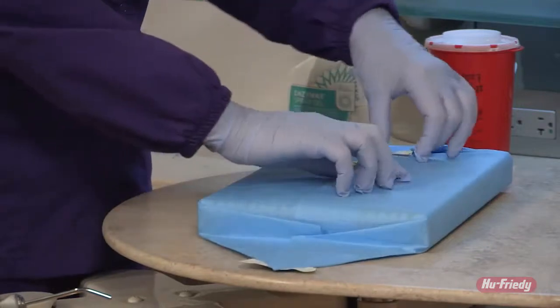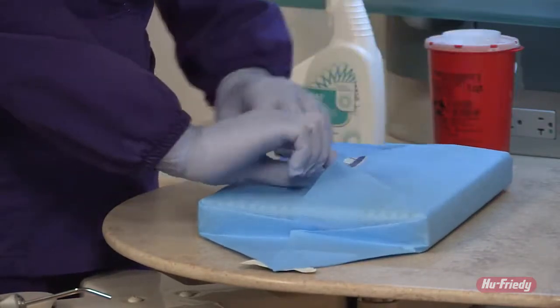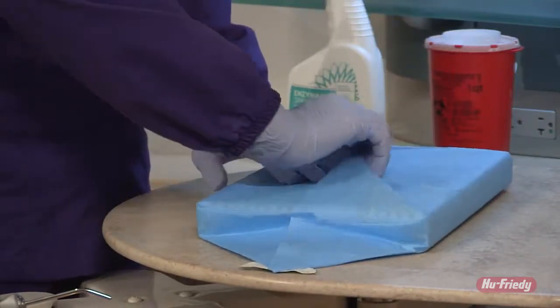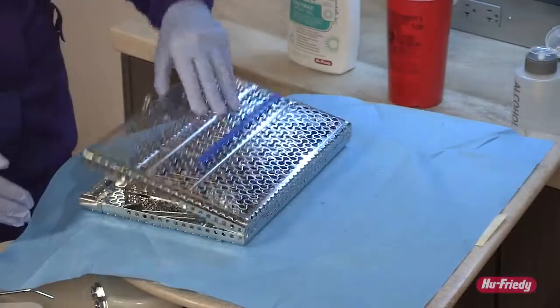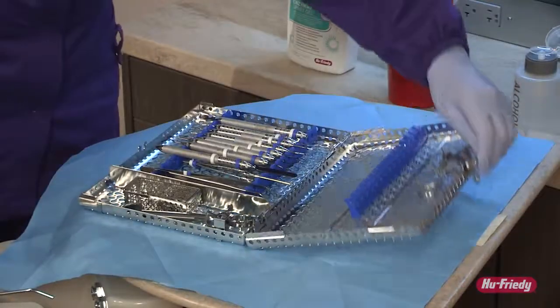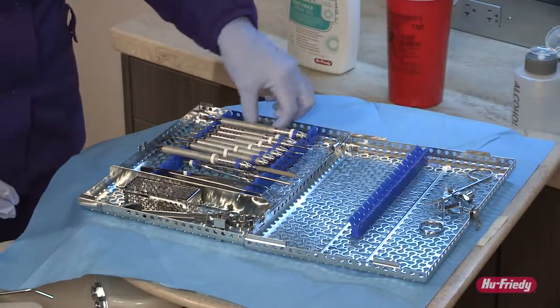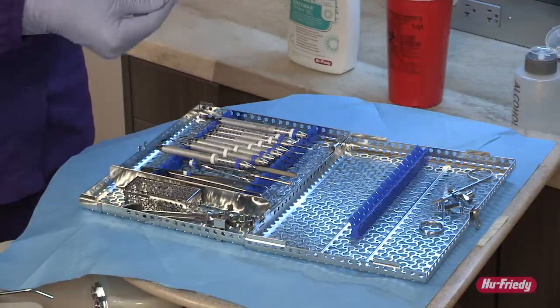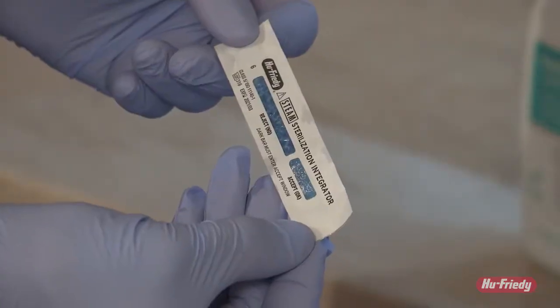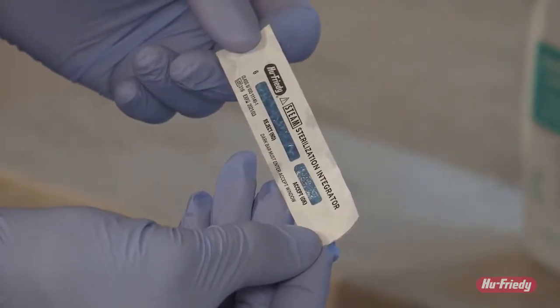If using IMS wrap for the cassettes, this wrap can be used as a sterile field. While you would have already confirmed sterilization from the external indicator, always be sure to check the internal indicator when you open the package to ensure it is fully changed.